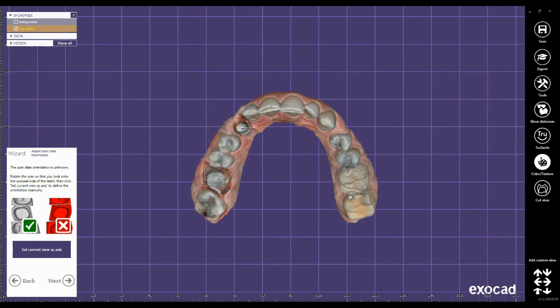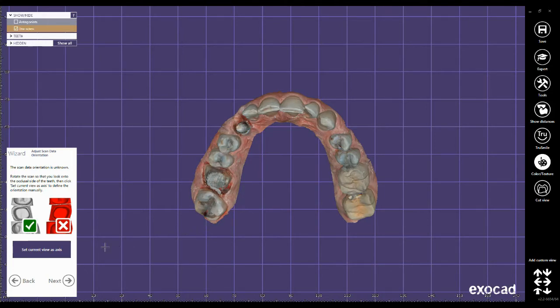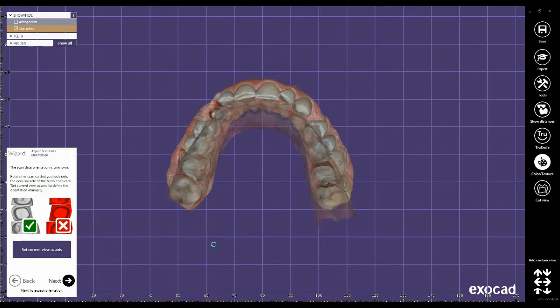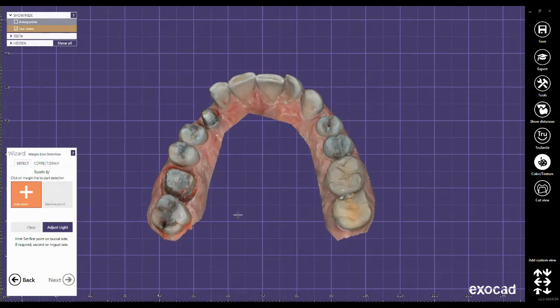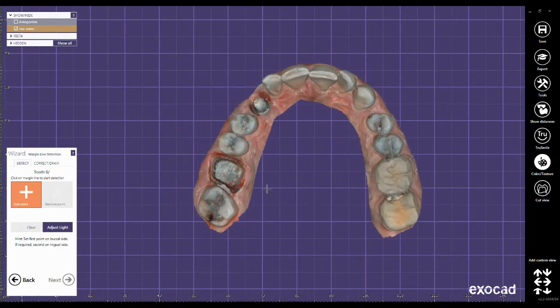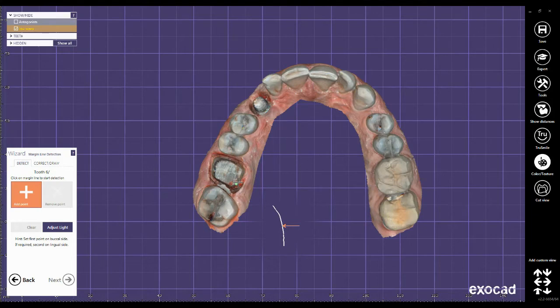Set the view as axis with right mouse click and then ready. Click on set current view as axis and then next, OK.